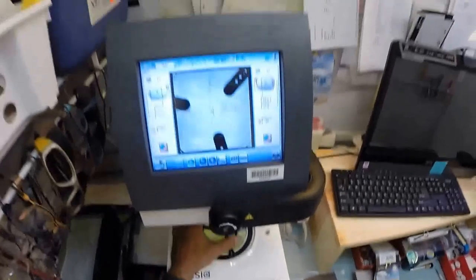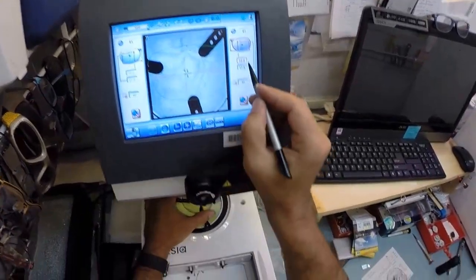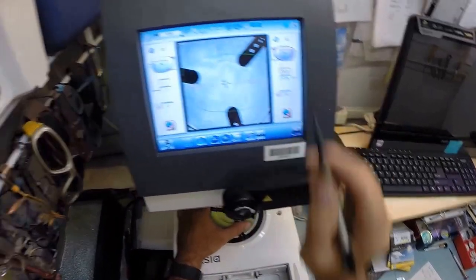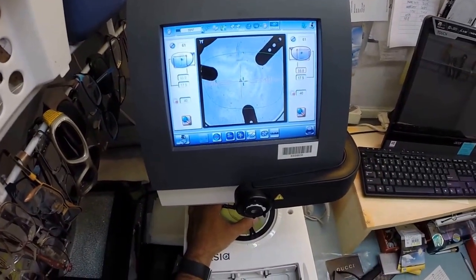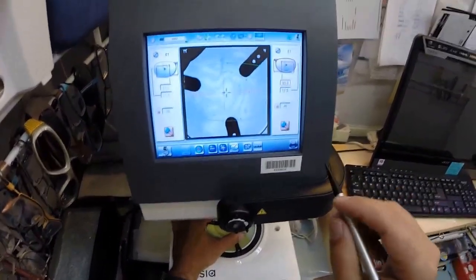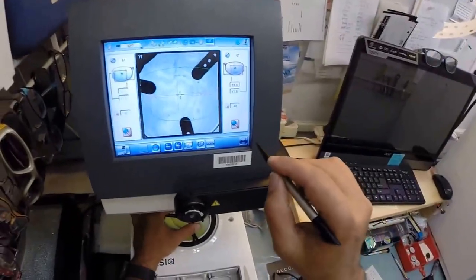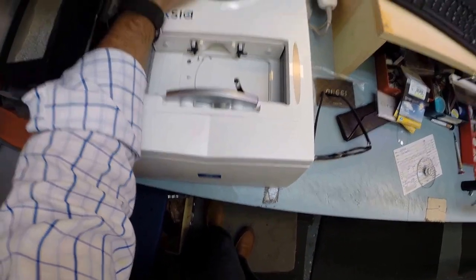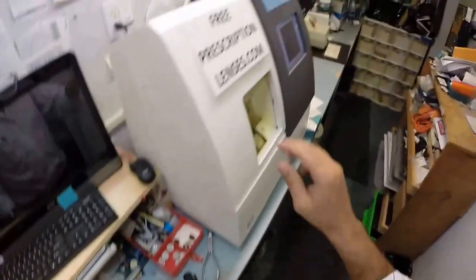Pull the paper away to make the black side sticky. Get the magnet lined up in there perfectly. Now your pupillary distance is mirrored from your right eye over to the left, which is 33. If it were different, now would be the time to change it. But it ain't, so I ain't doing nothing except making an awesome pair of glasses. I'm going to hit that button again. The arm is going to come down and place the block onto your left lens.